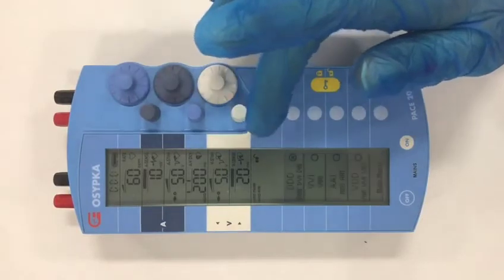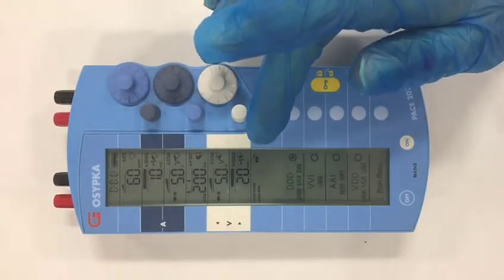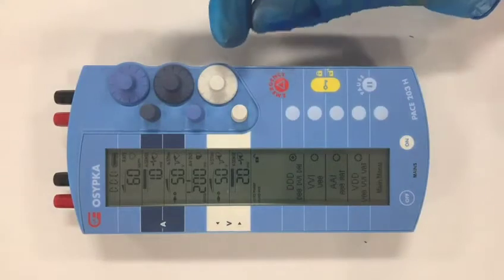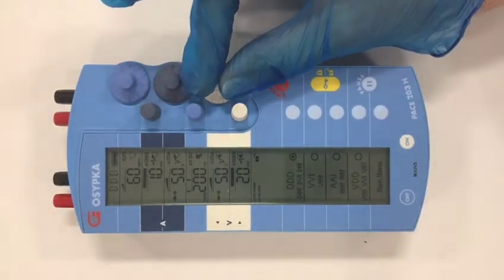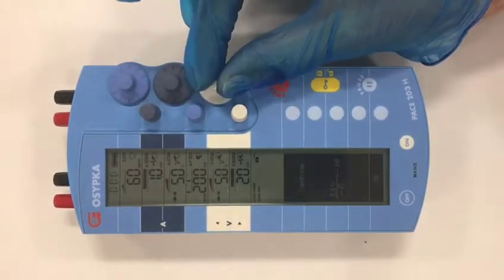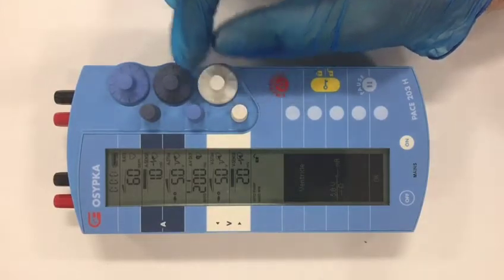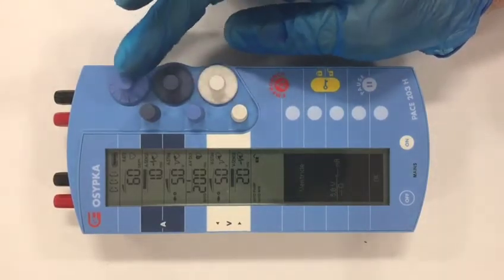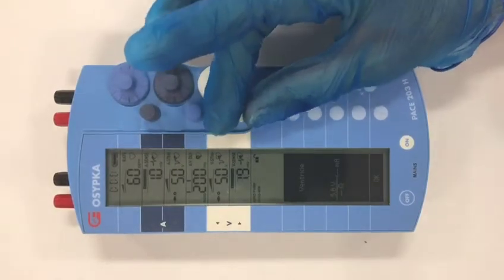The parameters in the white panel are related to the ventricle. The large control here is the output, and this can be changed all the way up to 18 volts, as can the atrial output. The other control here is the sensitivity.